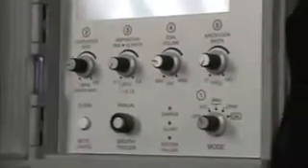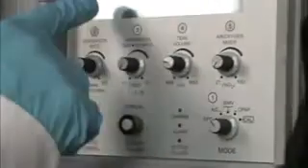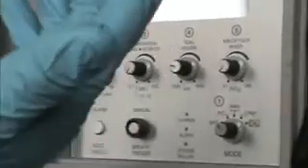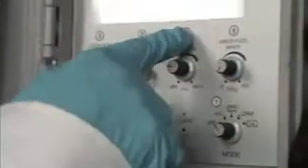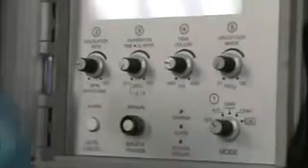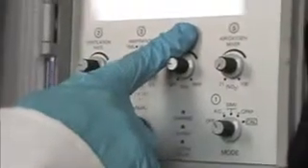There are mandatory breaths and non-mandatory breaths. The mandatory breath is one that the ventilator rate is set at. A non-mandatory breath is a breath that the patient takes on their own, and because we've set a tidal volume of 500 and we're in the assist control mode, whenever the patient triggers their own breath, they're still going to get a 500 cc breath if that's what the tidal volume is set at. This is different than other modes of ventilation that we'll talk about in a minute.